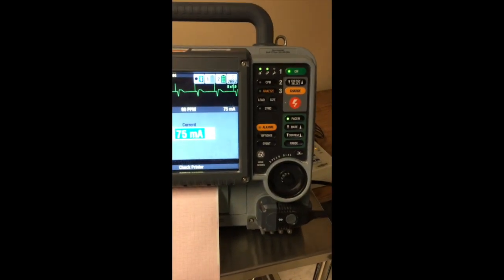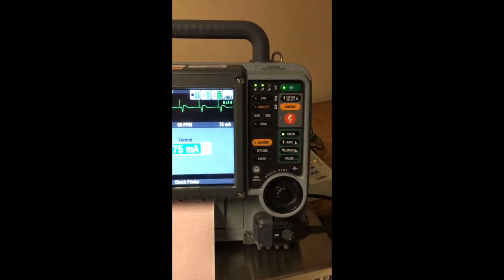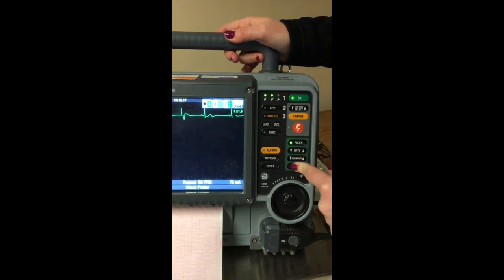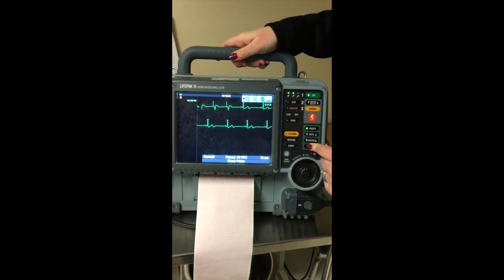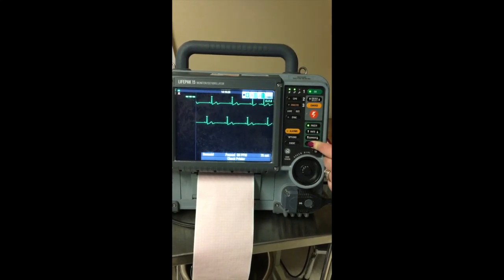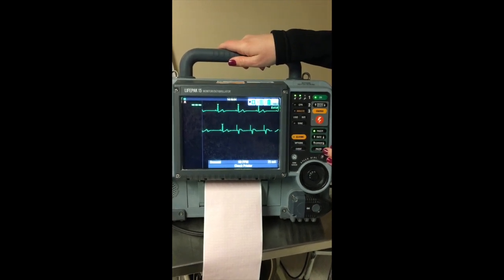Sometimes the physician will say, I want to be able to see what the underlying rhythm is. So instead of turning the whole machine off, if you just push and hold the pause button, it will show you the underlying rhythm. And you'll see the triangles again. That means you're not being paced. It won't allow you to hold it greater than 10 seconds, and it will automatically kick back in to the pacer mode. So that's the pacer settings.